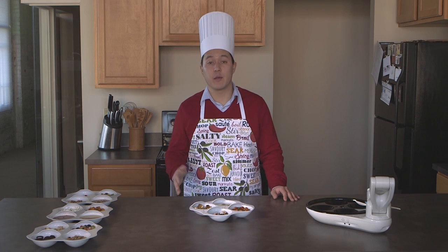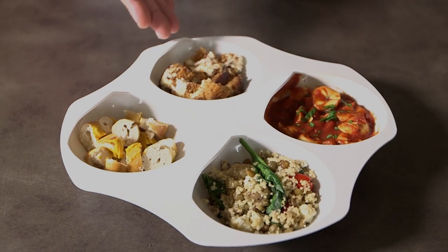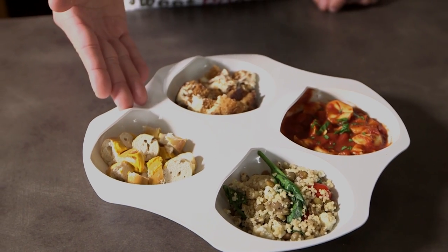The first plate we've prepped allows you to take your inner foodie on a tour around the world, with foods like tiramisu, tortellini pasta, lentil couscous, and homemade Smales pretzels out of Dayton, Ohio.